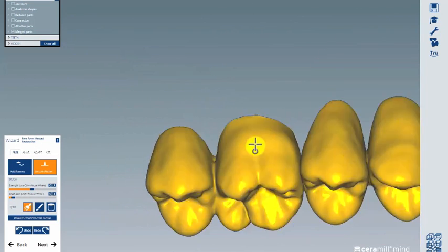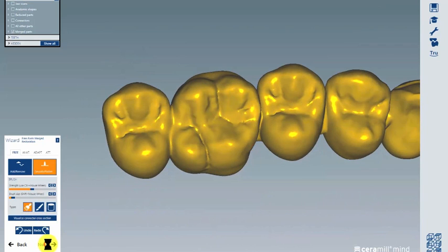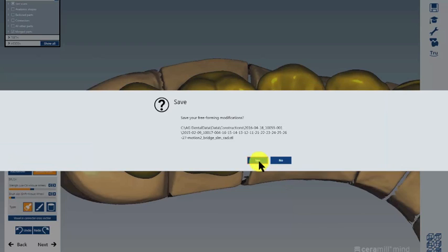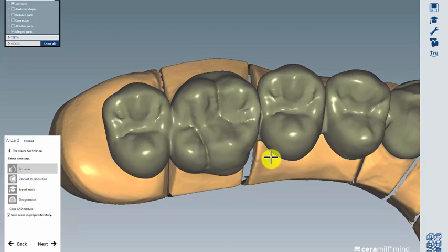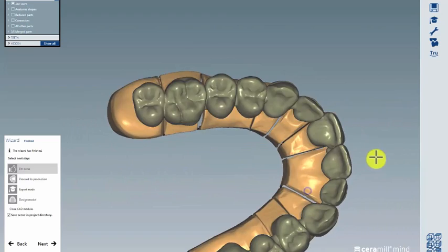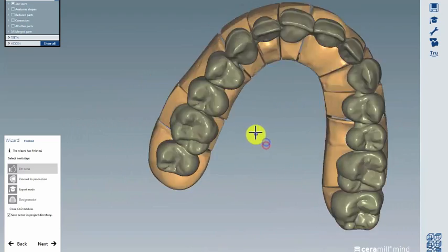After flattening, click Next and the work will be merged again. That's it! Now we have our 1.7, even though the work was already finished, without doing the construction from scratch. Thank you for listening.